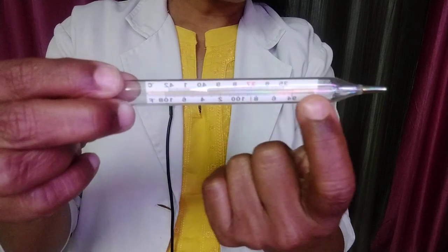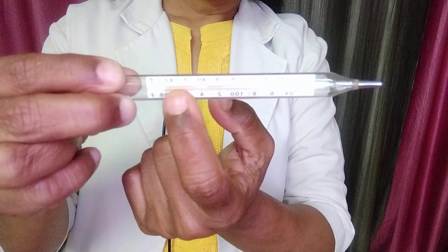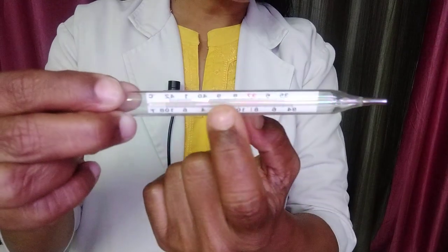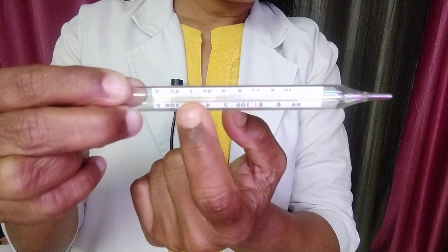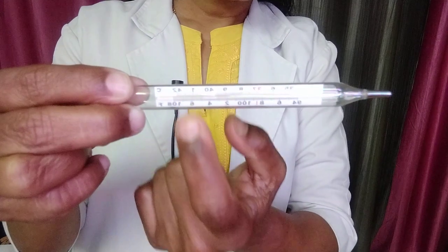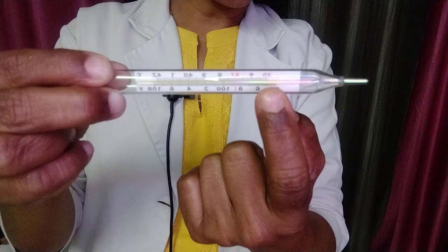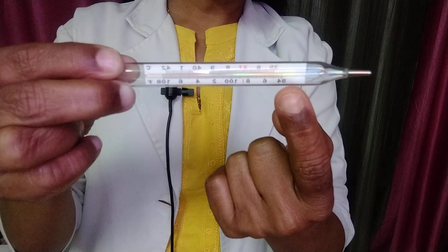Inside this tube you have a mercury column. Then you have a scale, either in degrees Celsius or in degrees Fahrenheit. The least temperature on the thermometer in Fahrenheit is 94°F and in Celsius it is 35°C.